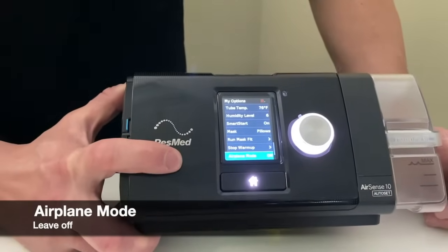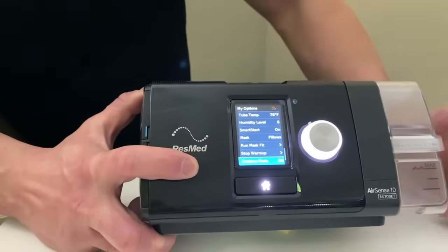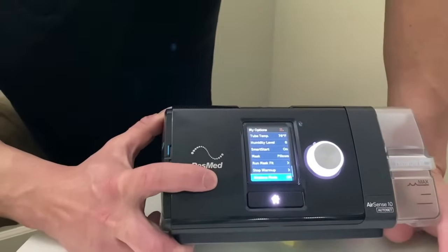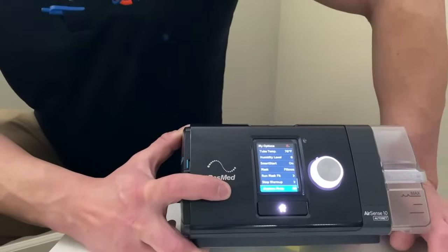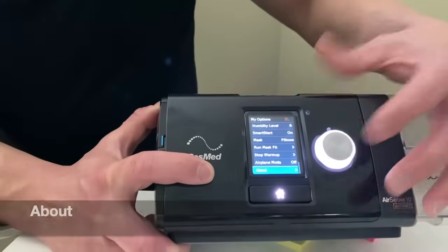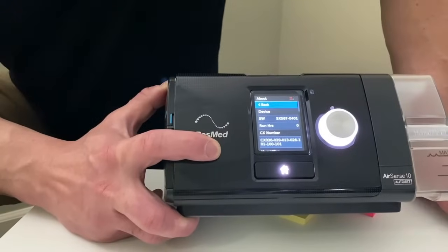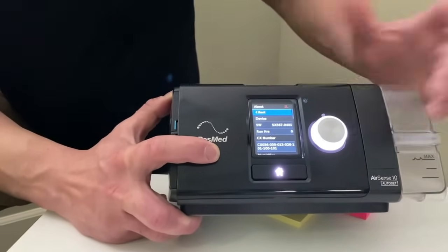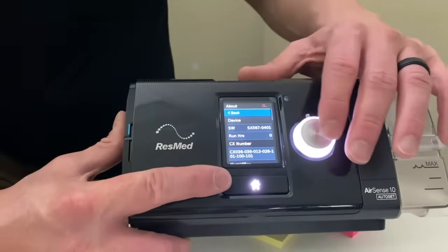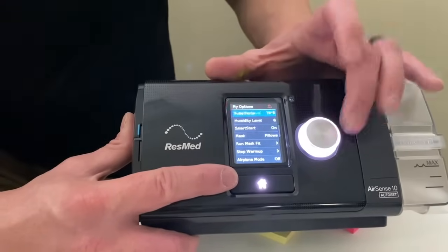Airplane mode — I'd always leave that off. What it does is turn off your modem, similar to your cell phone: if airplane mode is on, your phone won't call out. So leave airplane mode off. The last option is About, which shows software version, serial number — more for the manufacturer and your company. You probably won't care too much about that.